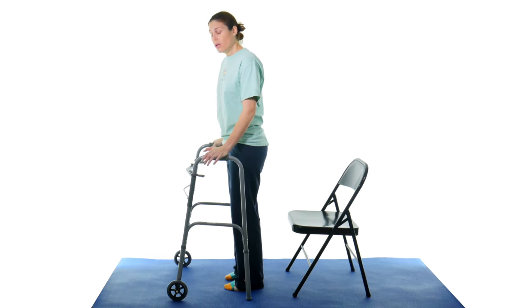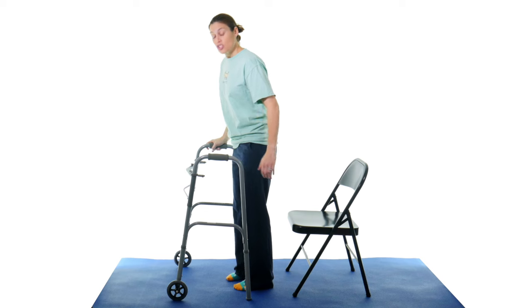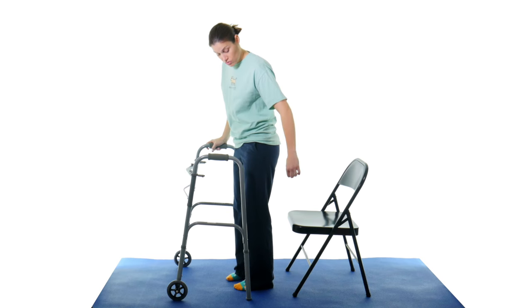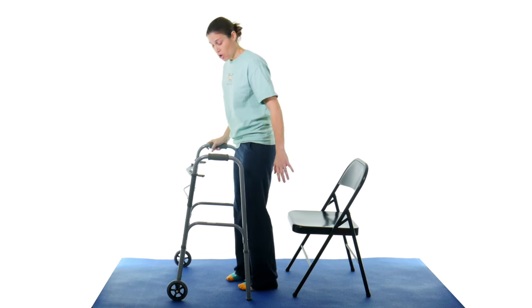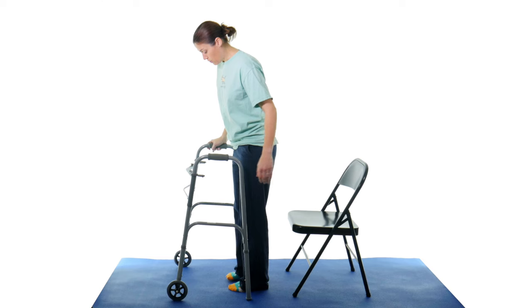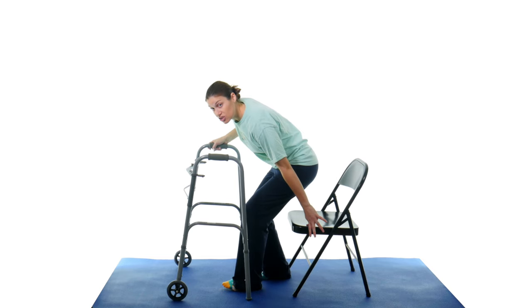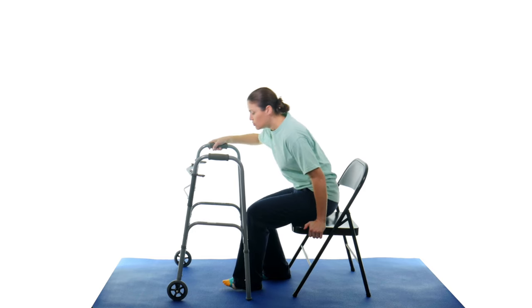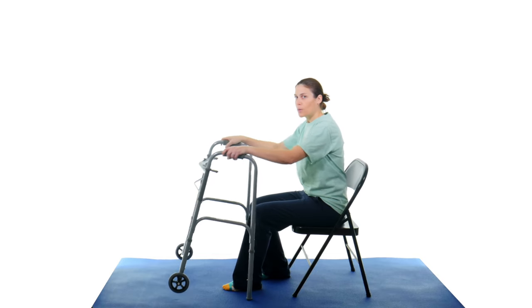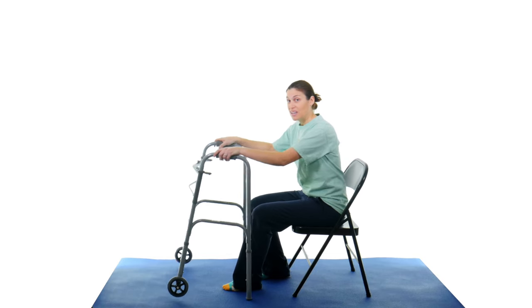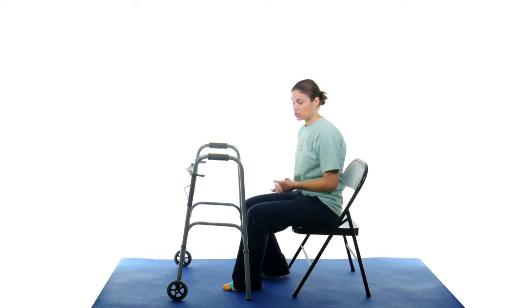So really the goal is take that one hand, leave one on the walker, start trying to find either the armrest which will be easier to find, or as you're going down put that one foot back, start reaching for the chair. As soon as you grab it, then you can support yourself and go back down. But don't bring that walker with you because again that's just going to cause a lot of issues.